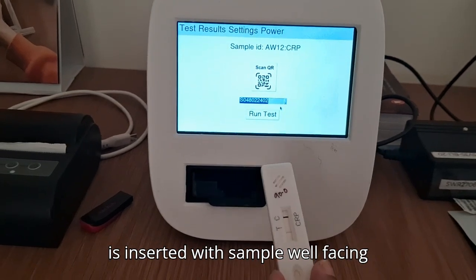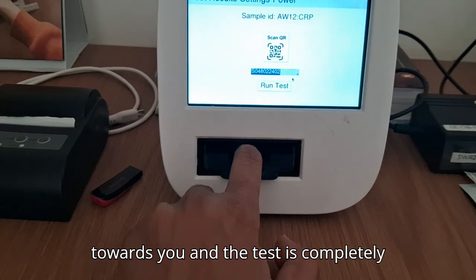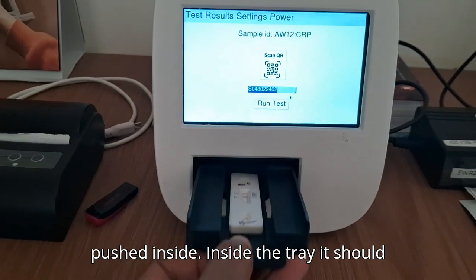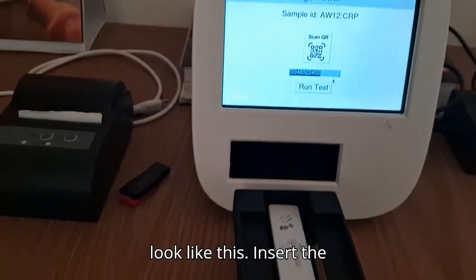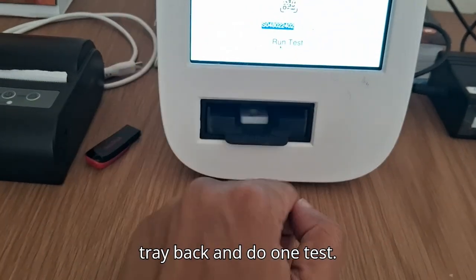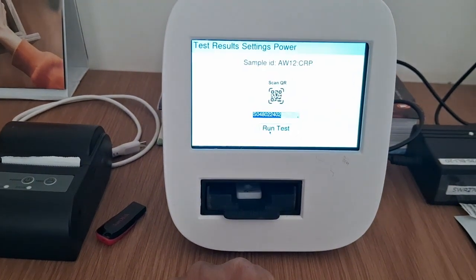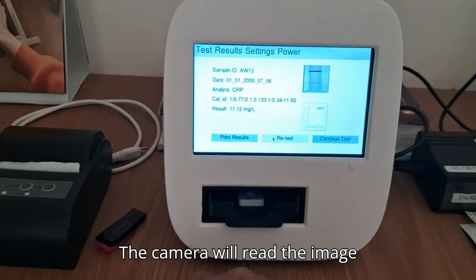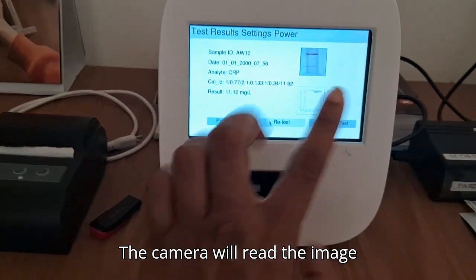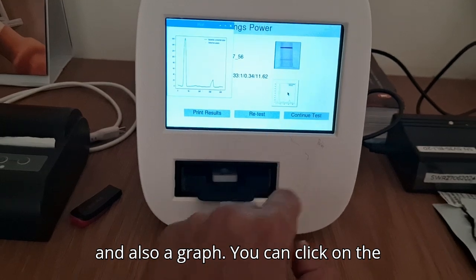Ensure that the test is inserted with sample well facing towards you and the test is completely pushed inside. Inside the tray, it should look like this. Insert the tray back and do run test. The camera will read the image and give the actual value of the result and also a graph.